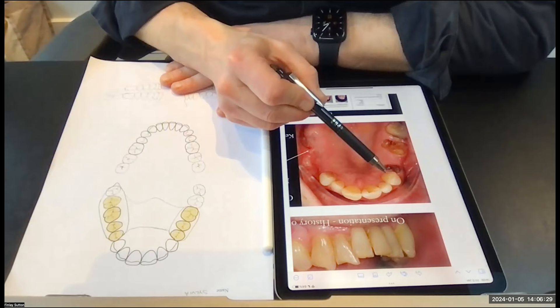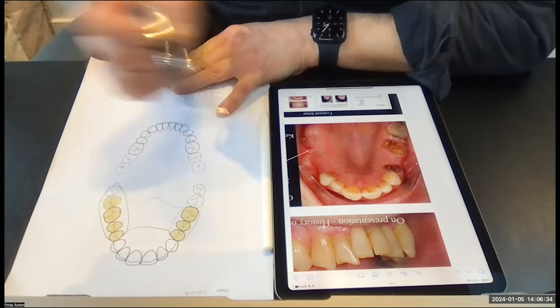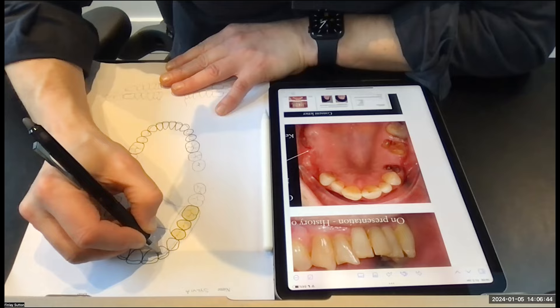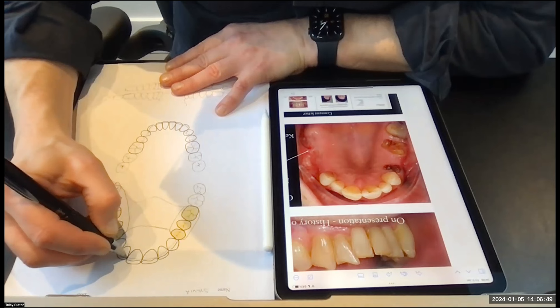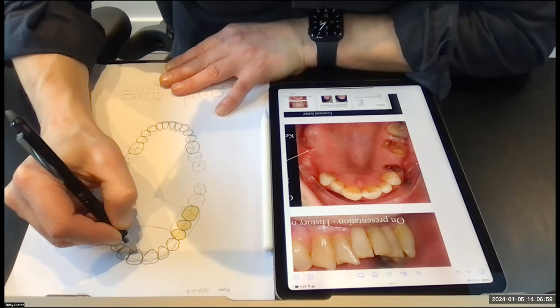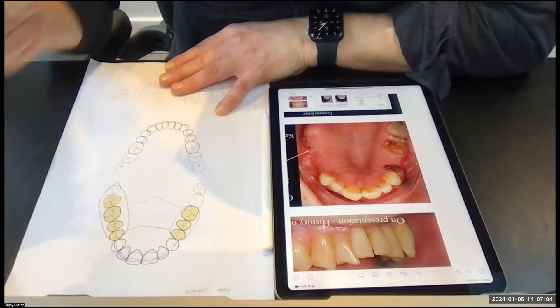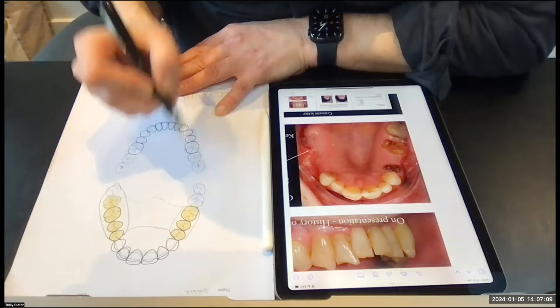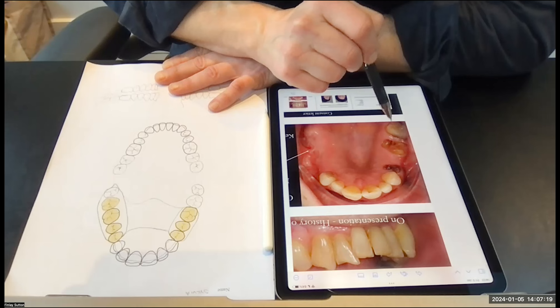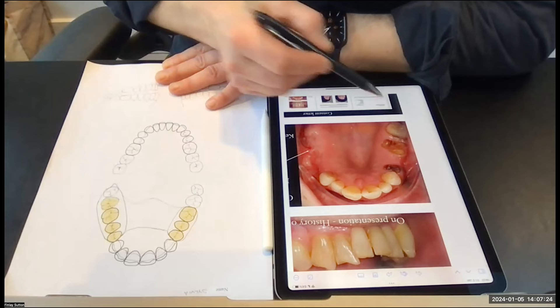I want to generate some support for the denture from the surrounding teeth, making this into a partial denture stroke splint. I'm going to draw on backings on these teeth. These metal backings are fantastic for: A, protecting these upper front teeth; and B, if a tooth is lost in the future, a tooth can be added onto the denture just there. I'm trying to keep everything away from the gingival margins. That back tooth has quite a large MOD restoration. The referring dentist Stuart said it may have a little crack in it too, but we do not want that tooth extracted.